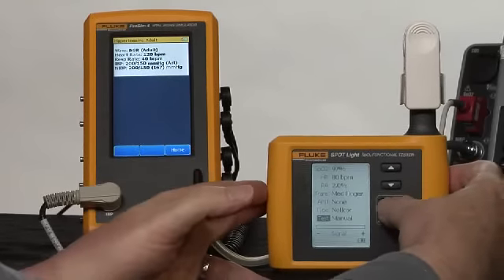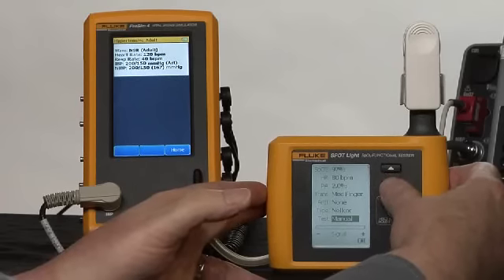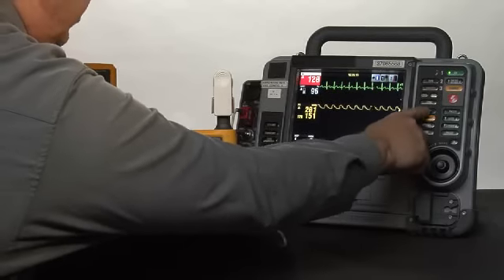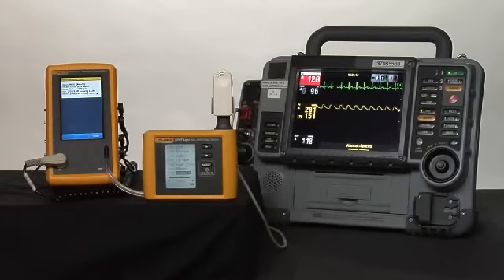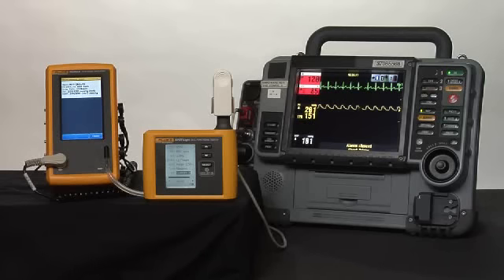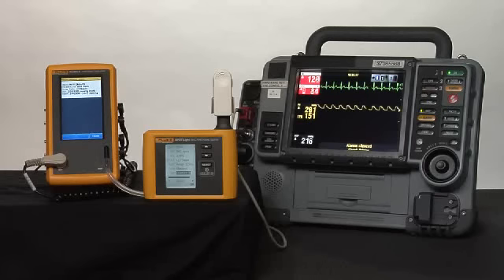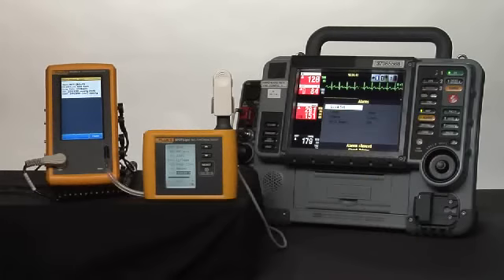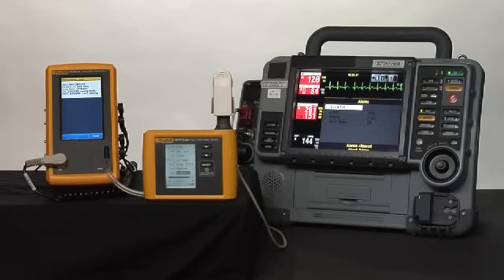On the Spotlight, I want to pick Custom 3 and I want to start an NIBP reading on the patient monitor. You'll hear the music begin from ProSim 4 as it simulates the NIBP from the patient and we'll make the measurement. Because this is a hypertensive patient, it sets off the high limit alarms — that's normal.